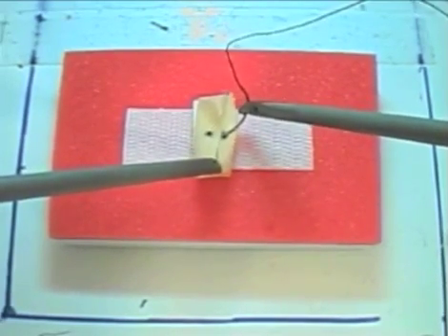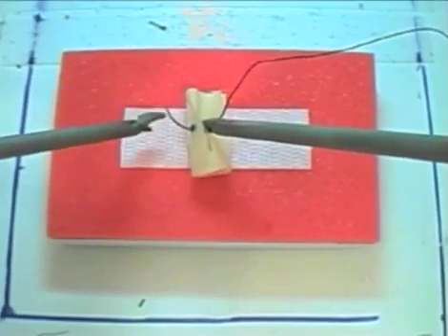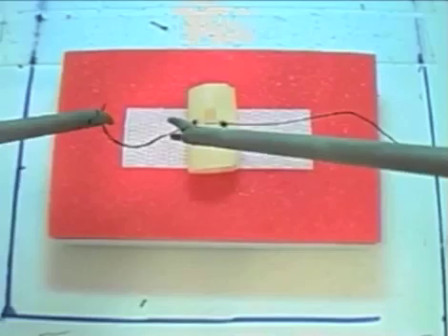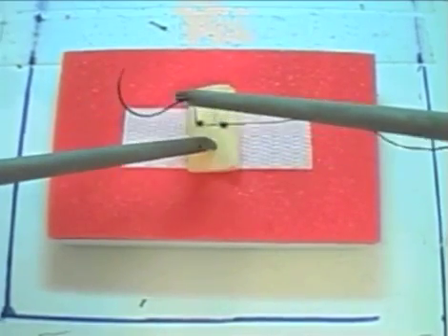Please note, in order to introduce the stitch into the box, it must be grasped by the stitch itself and not by the needle. The tail of the stitch will hang outside of the trokar.